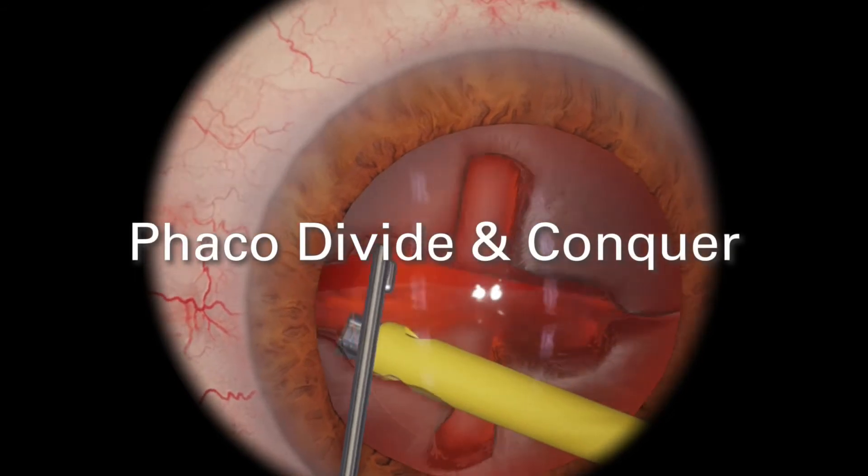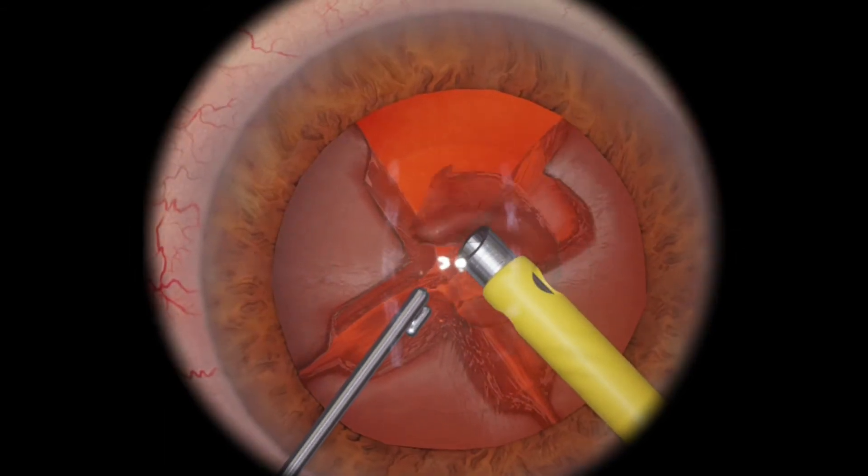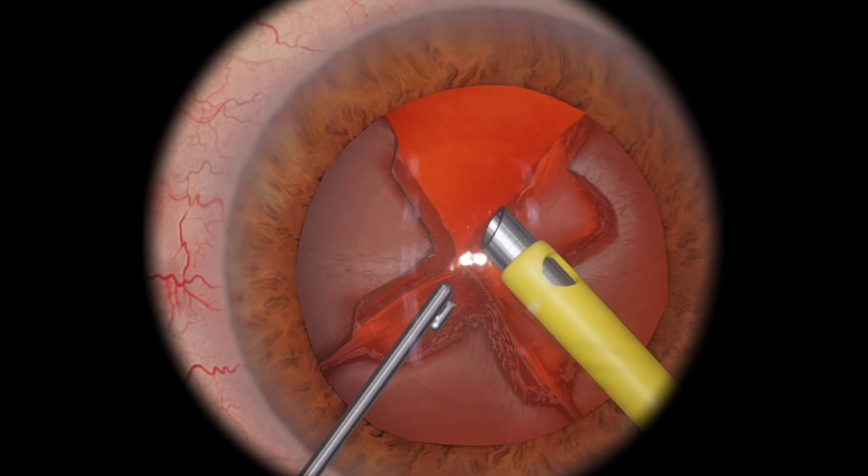For cataract surgery training, instruments such as forceps, viscocannula, cystitome and phaco-probe are available.